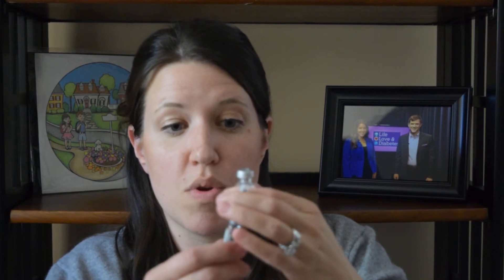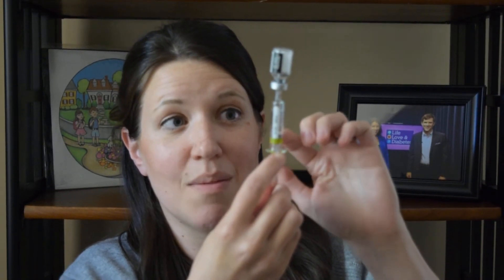You're going to remove the cap off the needle again. You're going to inject it into the vial, and then the needle is supposed to be below the level of the liquid, and you're very slowly going to draw the liquid down into the needle. You may not get it all, but get as much as you can without having the stopper go below the green line because then it will fall out the bottom. Get as much as you can into the needle — this is what you're going to inject into the diabetic.